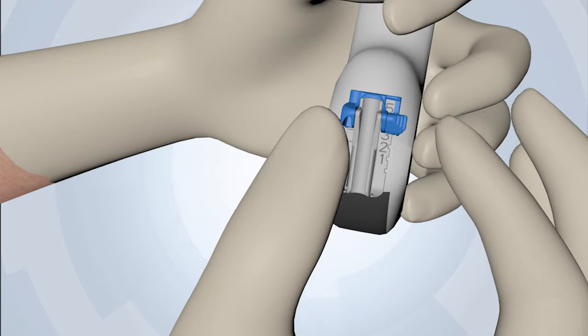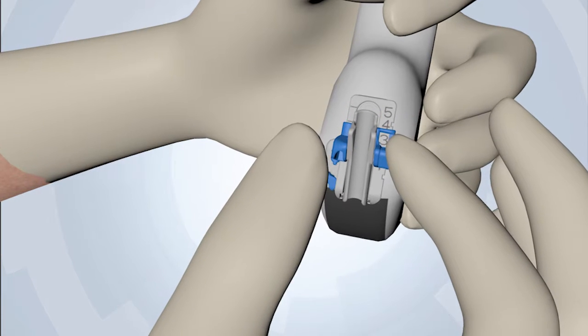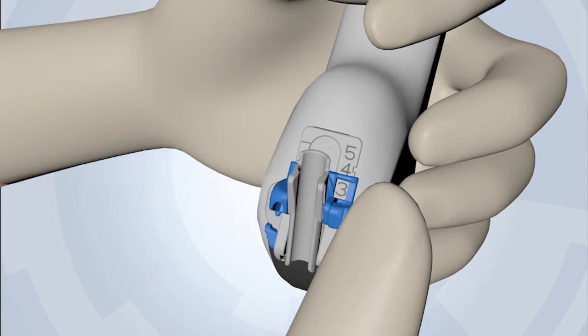These are chosen by sliding the angle selector up or down, then securing the angle using the angle selector lock.